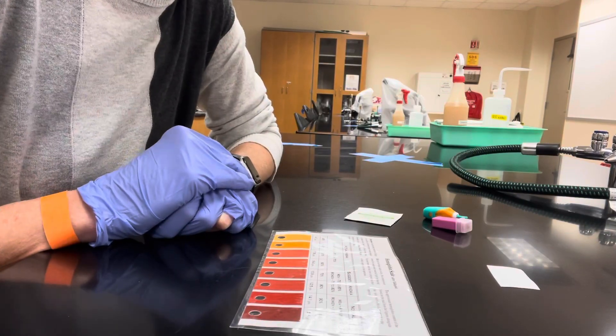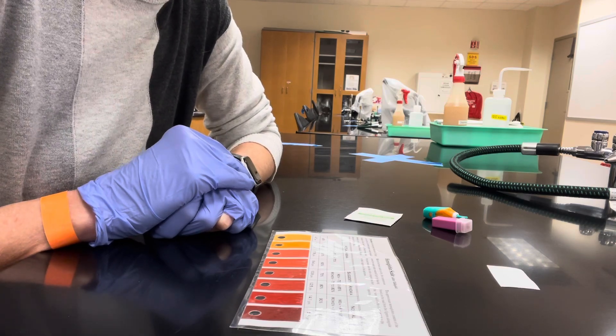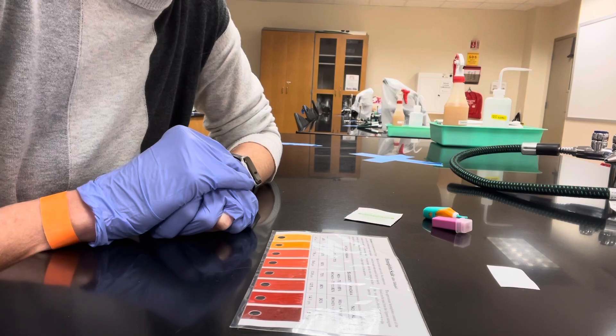Today, we're going to determine the hemoglobin level of your blood using the Talqvist method. To do this, you first need to gather your supplies.